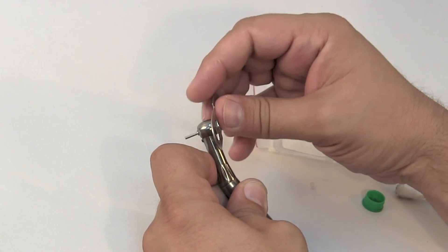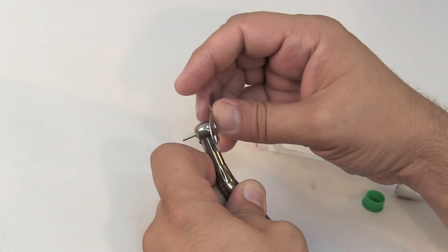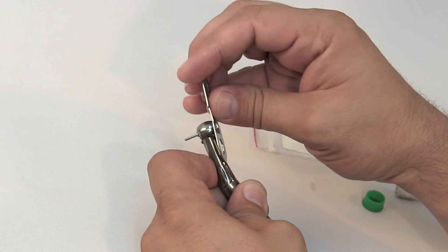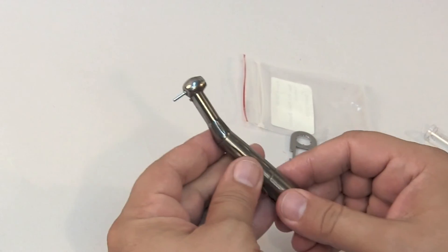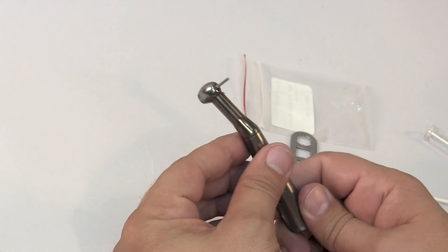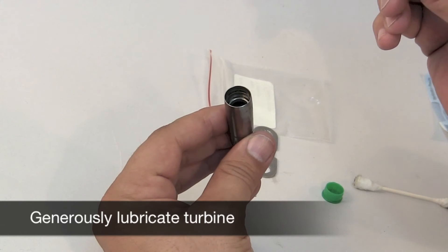If you're unable to fully seat the end cap, remove and check the end cap for debris or old turbine components. If your problems persist, give us a call. We'll pick up your handpiece and turbine free of charge and install the turbine for you.